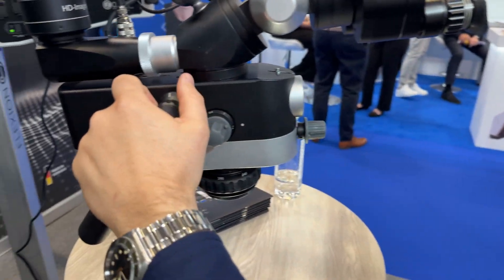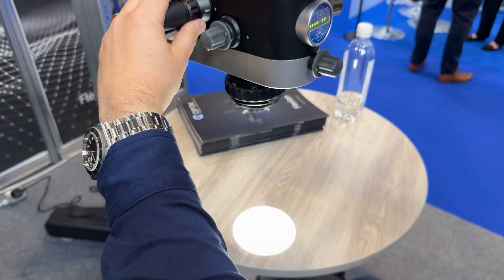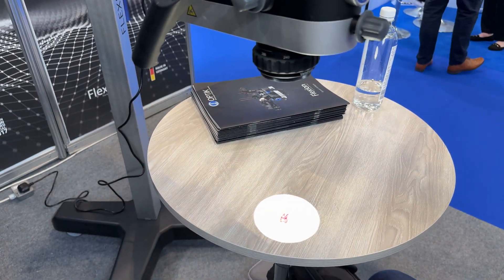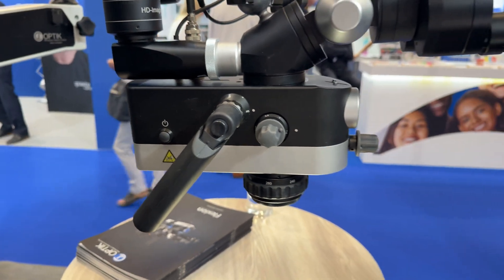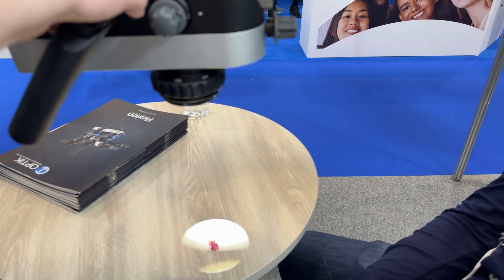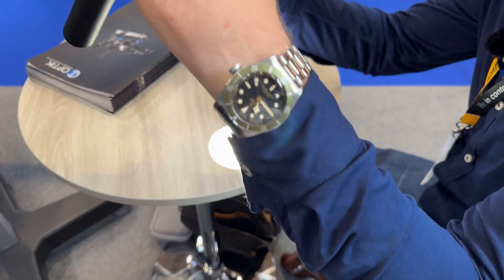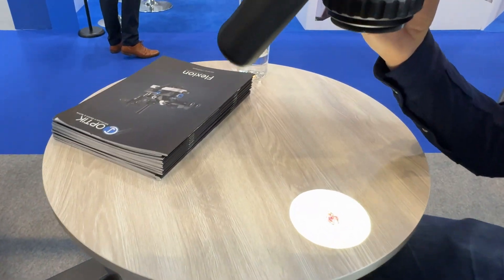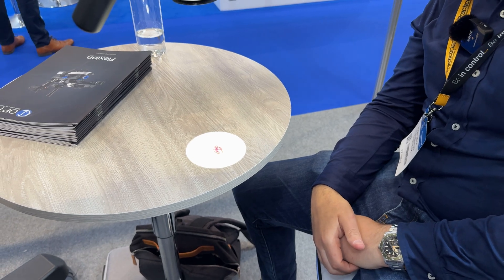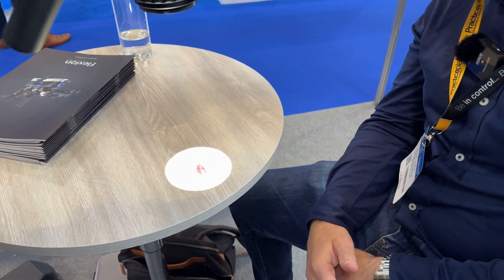With the twin blue we've also got a polarization mode - a little toggle here. Flip it onto polarization - just imagine you're putting a pair of good sunglasses on, if you're staring down the scope all day. The same for your nurse too. What does that do exactly? It's like putting a pair of polarized sunglasses on - it just takes the glare away. When you look down and put the polarization on it's like a shadow coming over - it locks down the brightness levels.